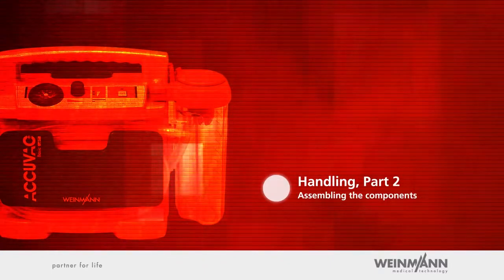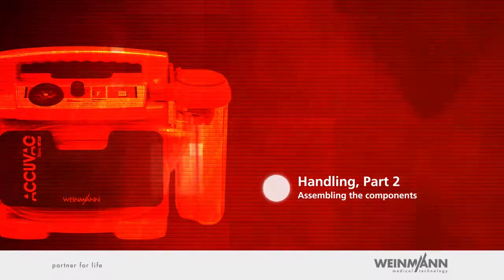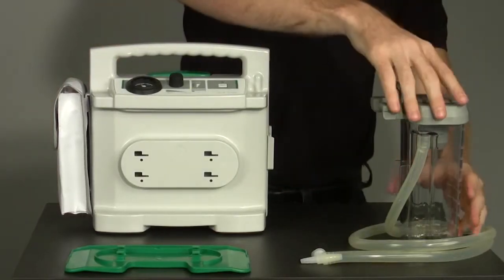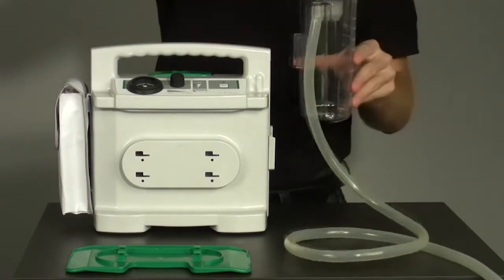Handling, part two: assembling the components. The assembly of the parts is just as easy in the reverse order.